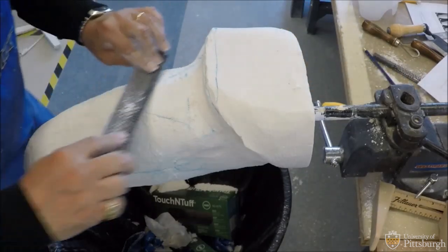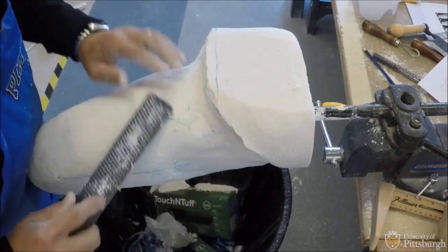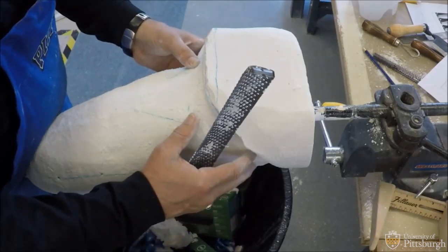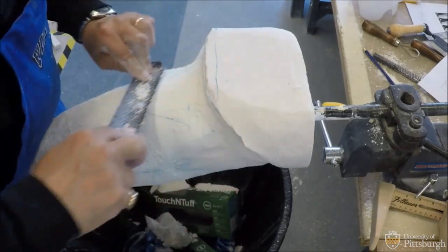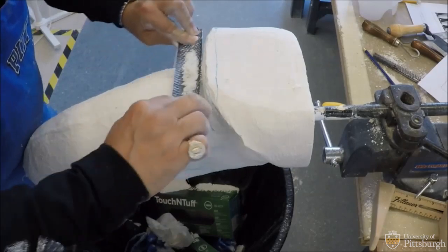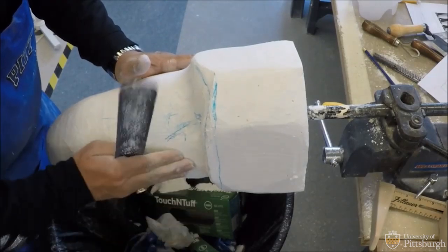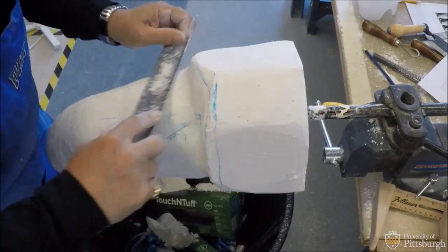Not much, just a slight. I know my patient can tolerate pressure in that area — it's pretty soft in this location. If you recall that the brims you put on your patient have created good compression, whether it was the quad or the IC, the area we've been working up to this point is all contained in those brims. It may seem like we're taking off a lot of material, but think about the compression created with the brims you chose. So I should not be affecting my global reductions at this point. I'm just making judgments on the distortion created by my cast. I've got some counter pressure here from the posterior lateral to the medial posterior corner, and I've kept that U that I need in my brim.